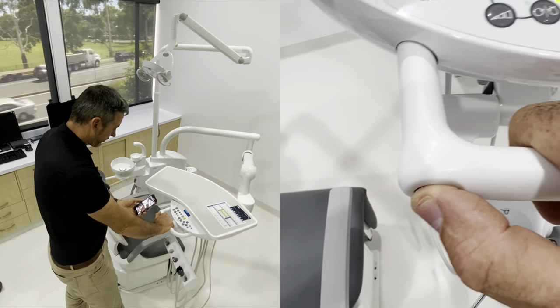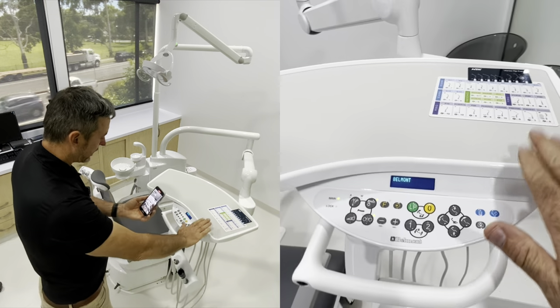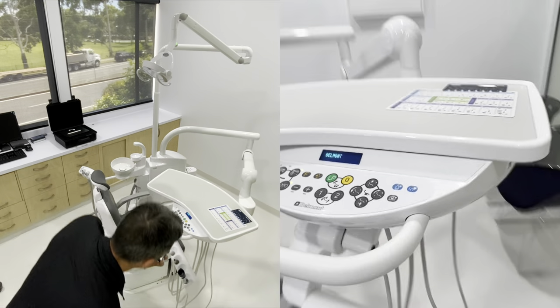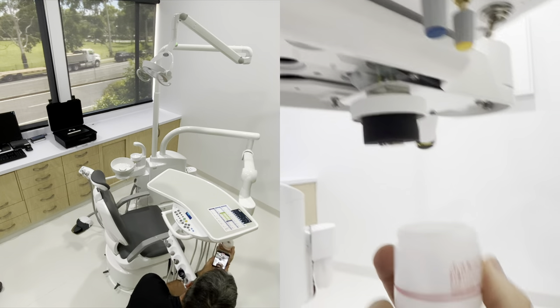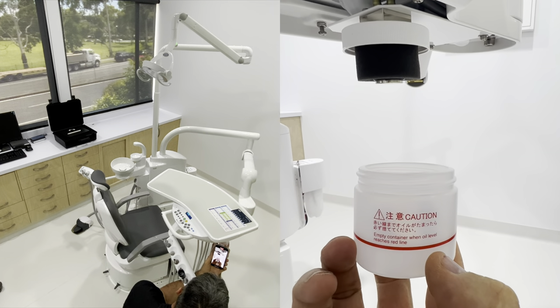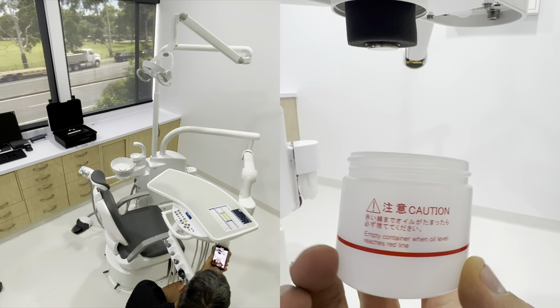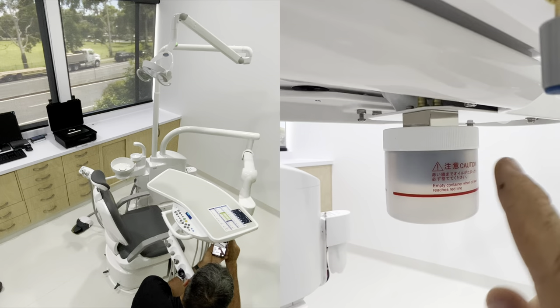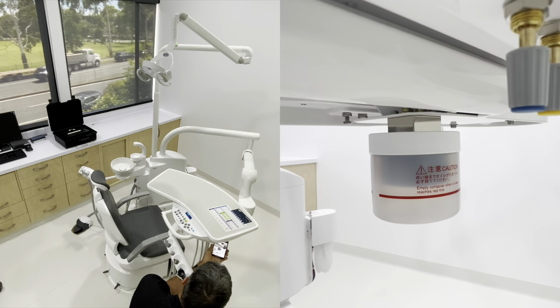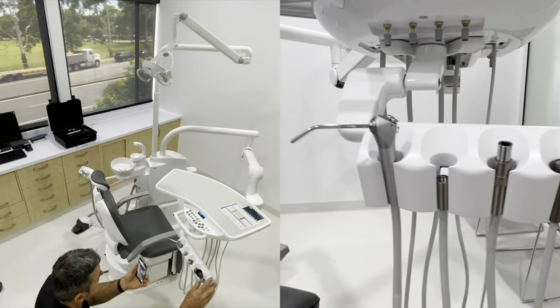We've got the brake here - push to move up and down, then release and it locks in with that little air brake system there. We've got a little reservoir here. It will collect any oil or water or anything that comes through the exhaust ports of the hand pieces. In a lot of cases that will indicate a dodgy air ring and you might get water mixing and coming back into here from your hand pieces. So that's just capturing all the excess oil.